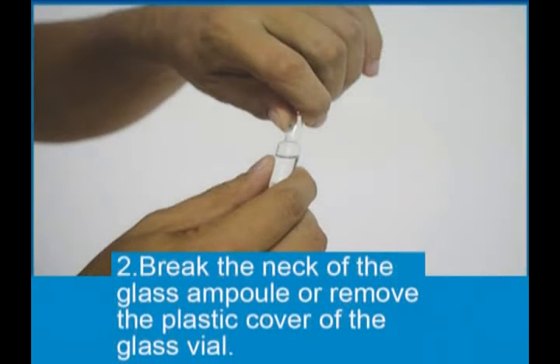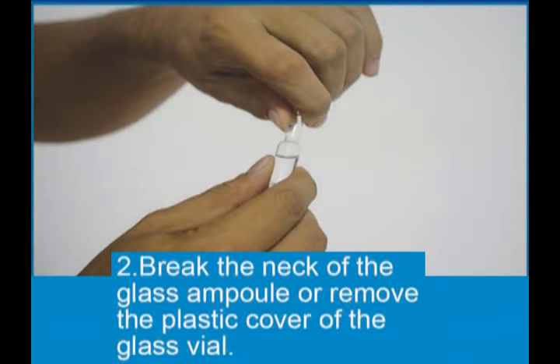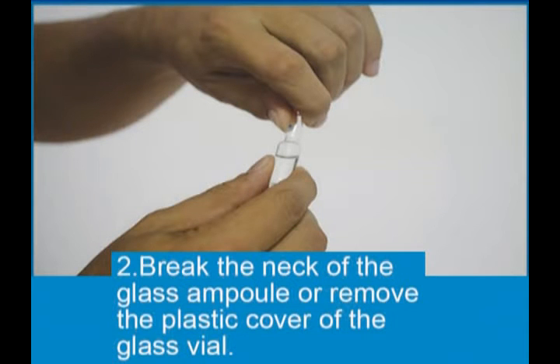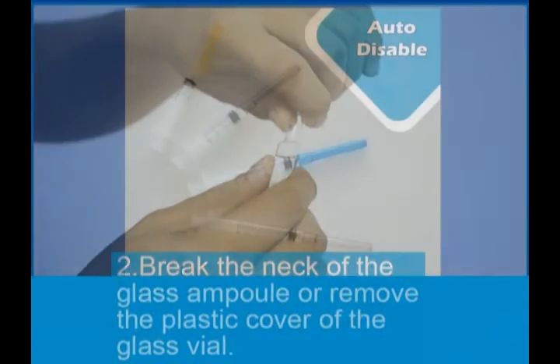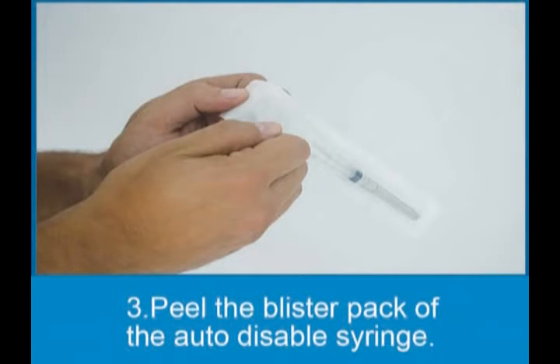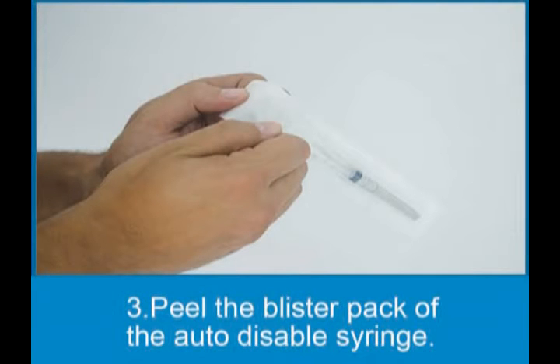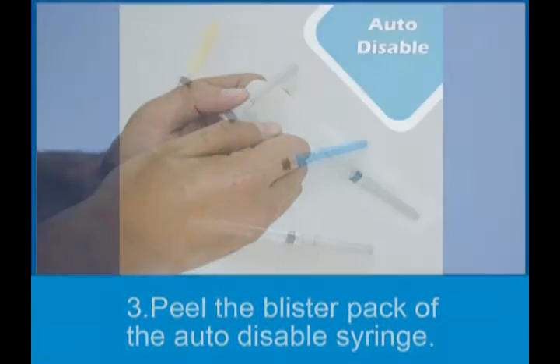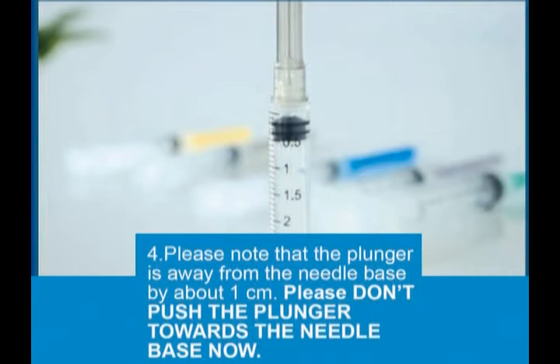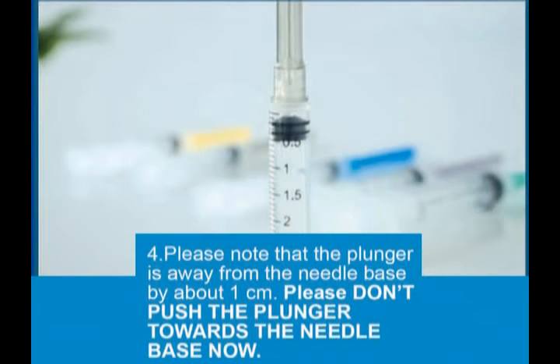Break the neck of the glass ampoule or remove the plastic cover of the glass vial. Peel the blister pack of the Auto Disable Syringe. Please note that the plunger is away from the needle base by about 1 cm. Please don't push the plunger towards the needle base now.